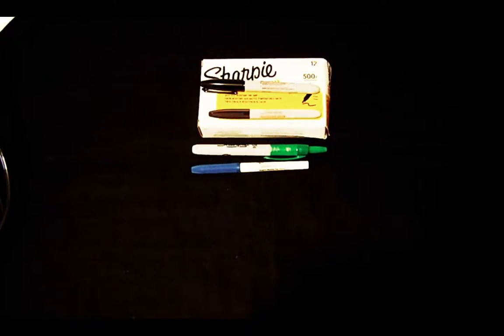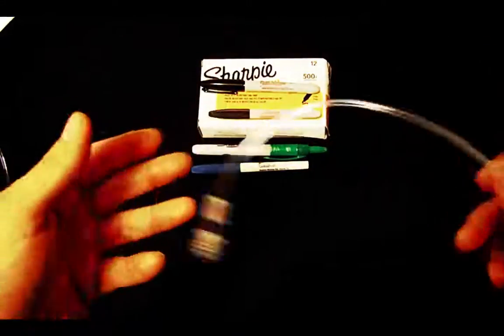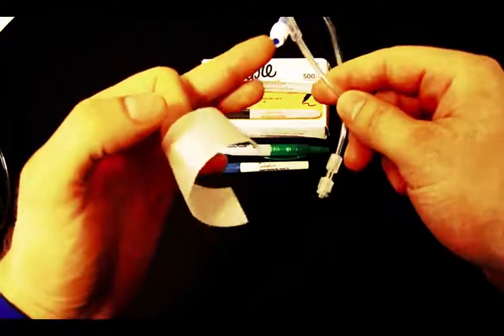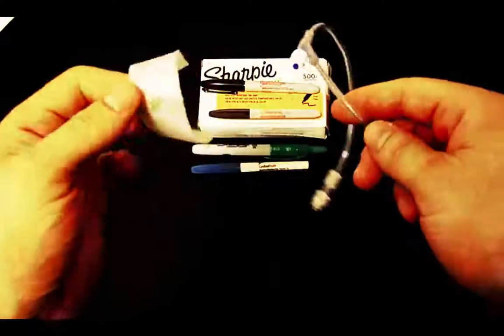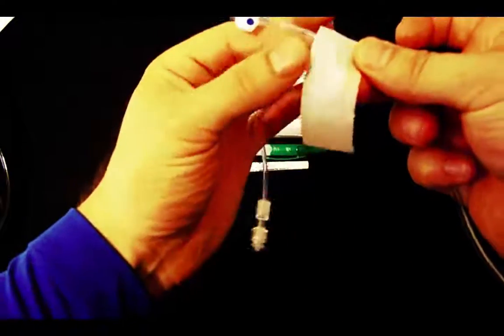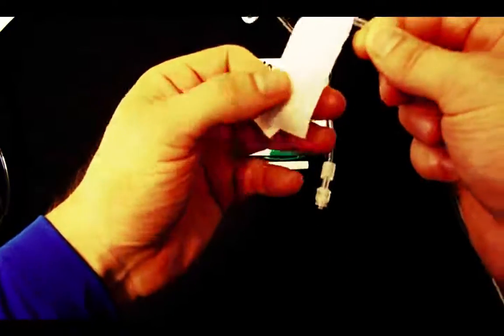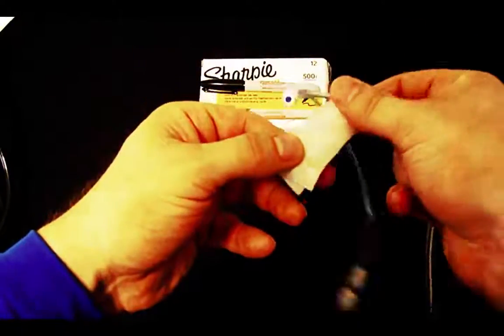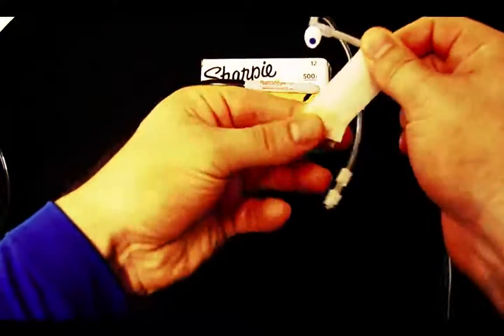What you're going to do is have your IV administration set connected to the medication. You'll take a piece of tape and place it above where you'd push a medication if needed. This way it's easier to grab the line, know exactly what it is, and know if this line will be compatible with the drug you're about to push. Generally, you want to push drugs into a line that doesn't have any other drugs — like a normal saline line.